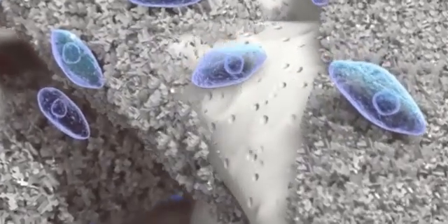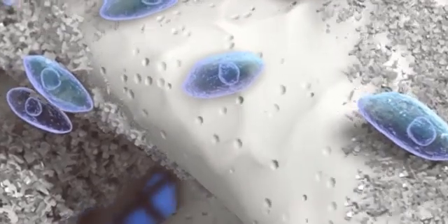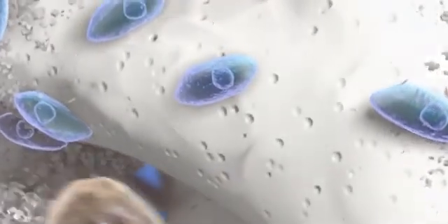Osteoblasts are attracted to and begin to attach to this nanotextured surface. Collagen and new HA bone mineral begin to form.